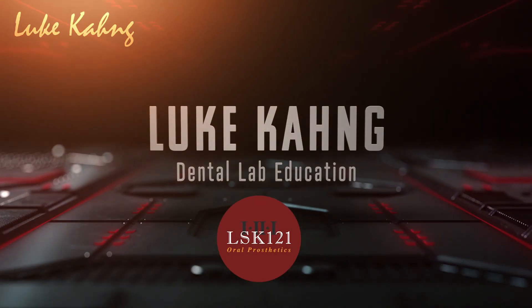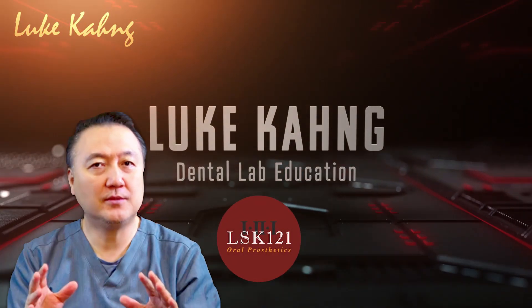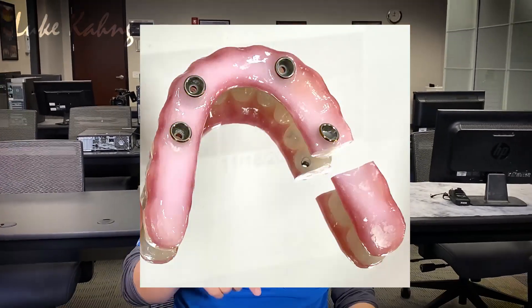So we made it — guess what — six years later, eight months later, the zirconia bridge is cracked. I make beautiful restorations most of the time, but not in these cases. I said oops, we made a mistake because we just followed the doctor's prescription.